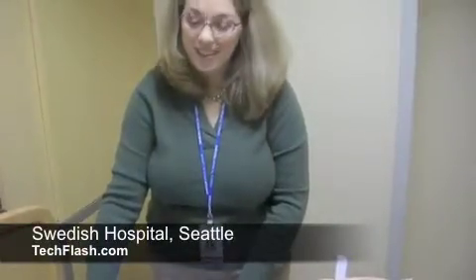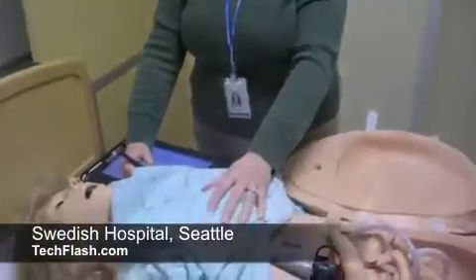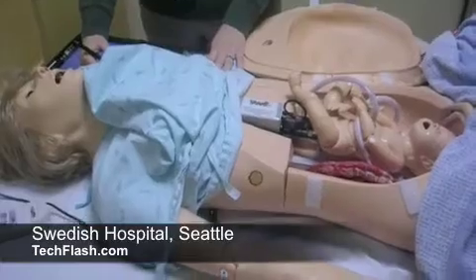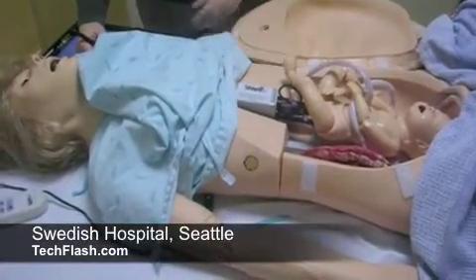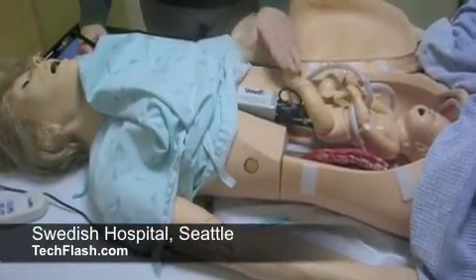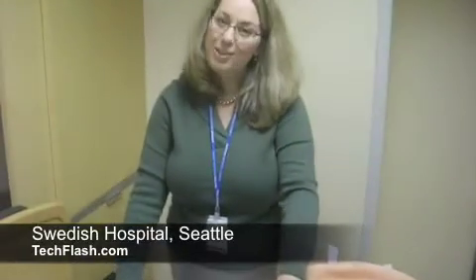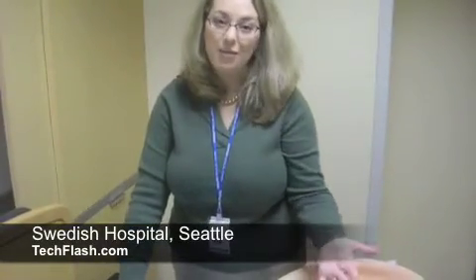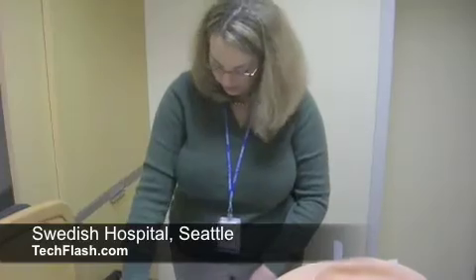So Tasha, what do we have here? Well, here we have our Noelle Obstetric Mannequin. She gives birth, and we right now are simulating an actual birth with Noelle. We are simulating a normal birth, so there's not going to be any complications with this one right now. But this will at least give you some idea of what she can do when she's delivering a baby.